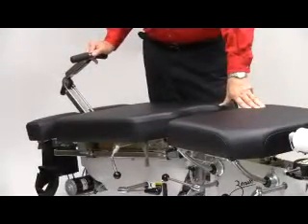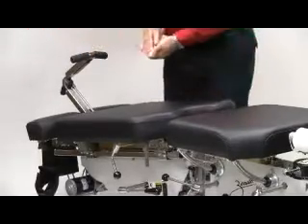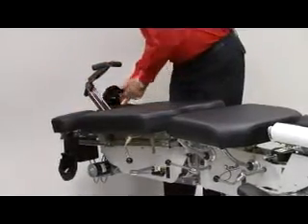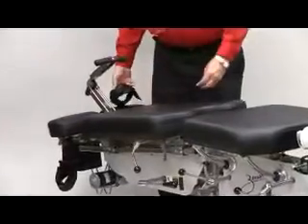The minimum and maximum length of travel are an additional 10 inches of excursion. At the foot end, we include an adjustable ankle relaxer system which locks in any position for patients' comfort during treatment, and ankle cuffs which simply Velcro over the malleoli.